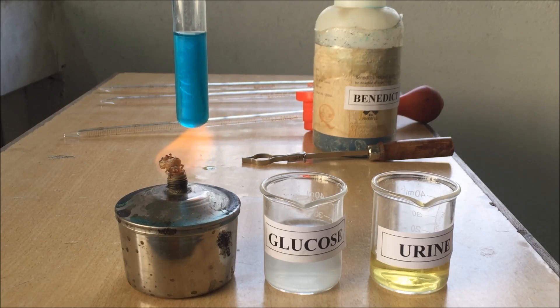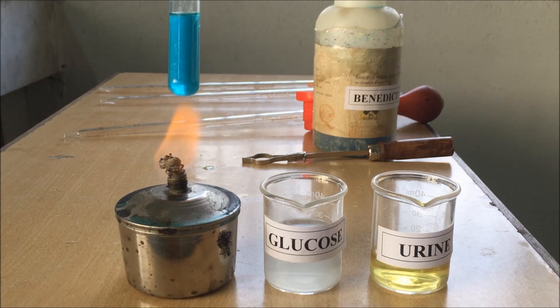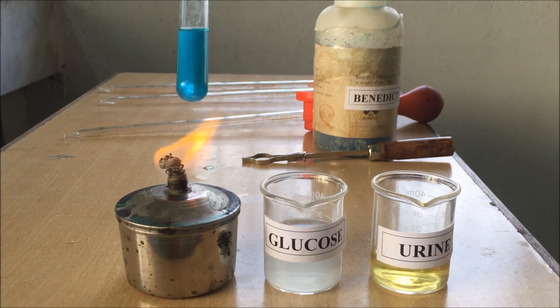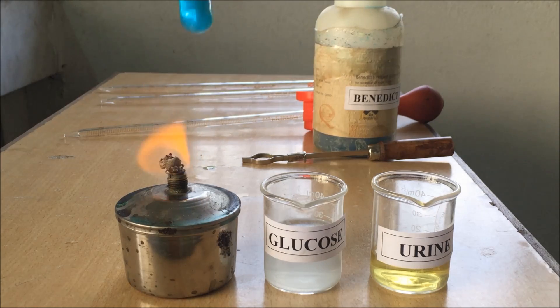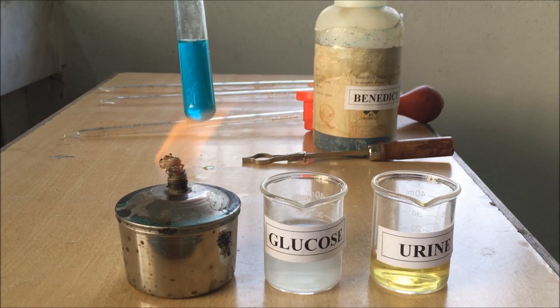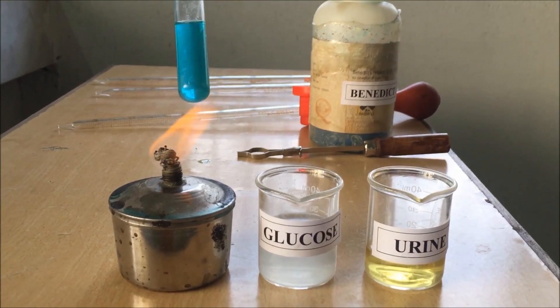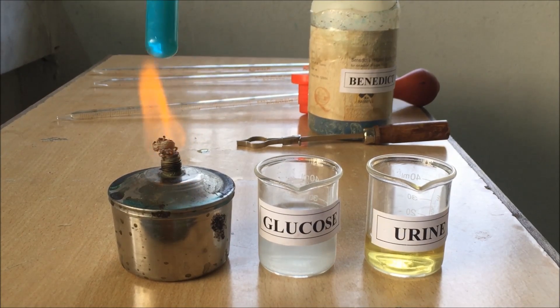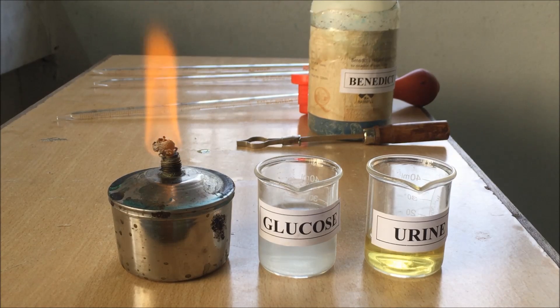The solution is currently a pure sky blue color. Once it gets heated, the color will start to change from blue to green, green to yellow, and yellow to orange, then to brick red. The change in color of the solution indicates the percentage of sugar present in the sample. Here we are using a pure glucose solution, so this will change up to its maximum level, which will be brick red.